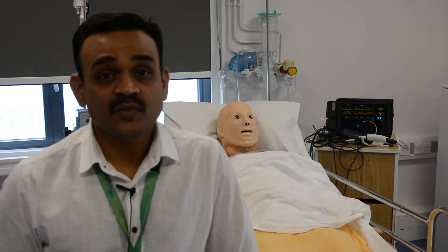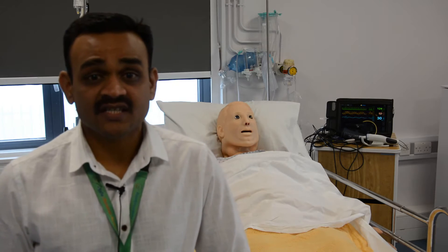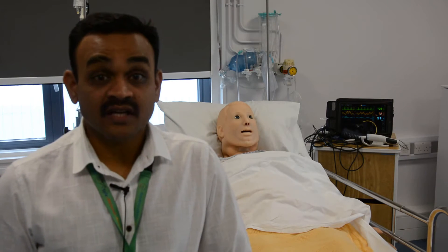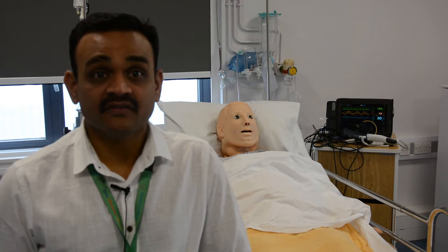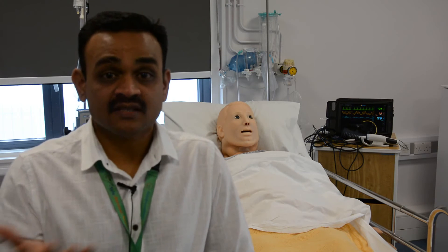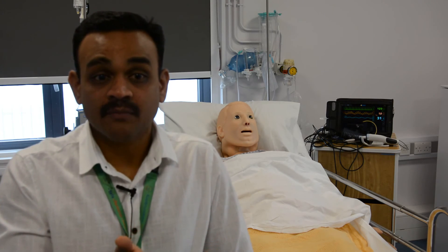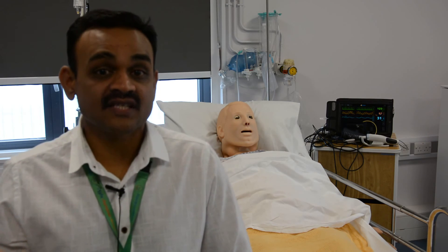It provides us with an endless potential for recreating situations and scenarios to train and improve patient safety and quality in our hospital. It can be used by any department, any staff member, to simulate a situation — from A&E or a ward-based scenario to critical care — and we can even develop it further to include other areas in the hospital as well.